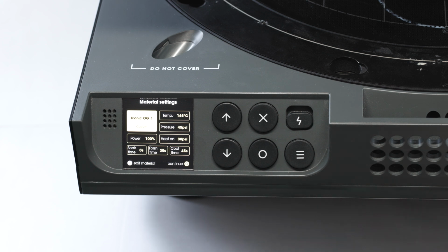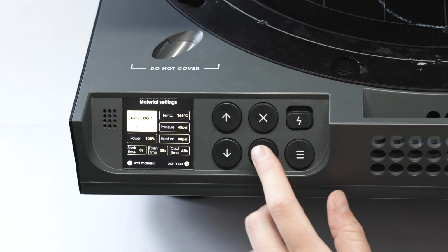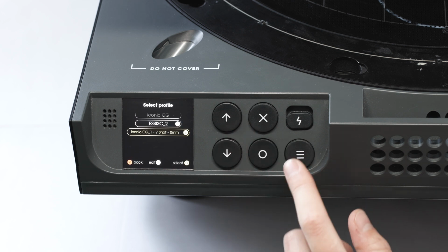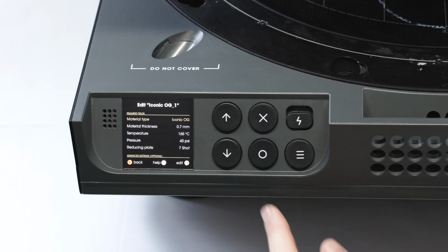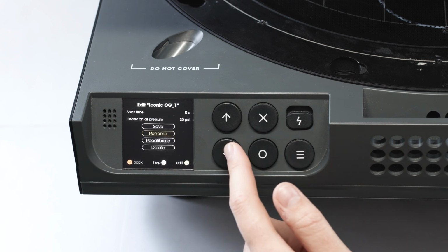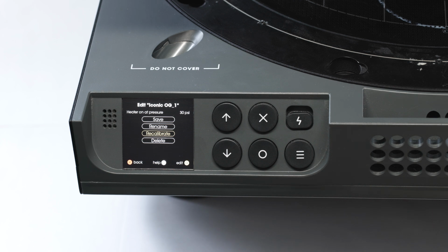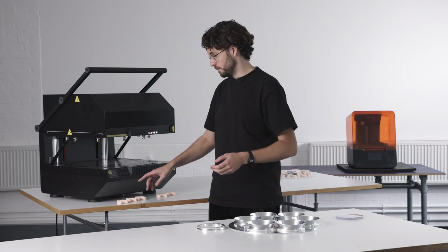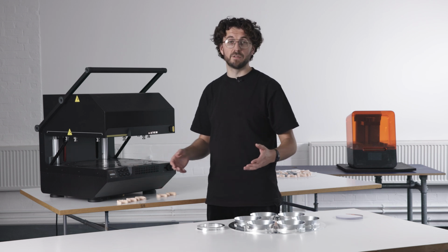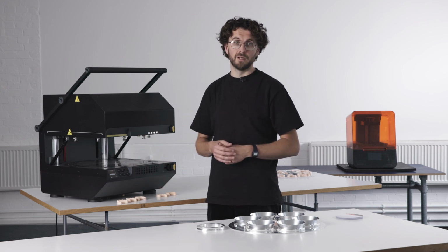And if you want to go back and edit that material, it's as simple as going down to that one that you've just saved, clicking edit, and then you can go back in to change those settings. And you can also just hit recalibrate if you want to use the machine purely in manual mode as well. But we are happy with it, so we're going to continue, and then it will take you straight into the normal dental OS flow.